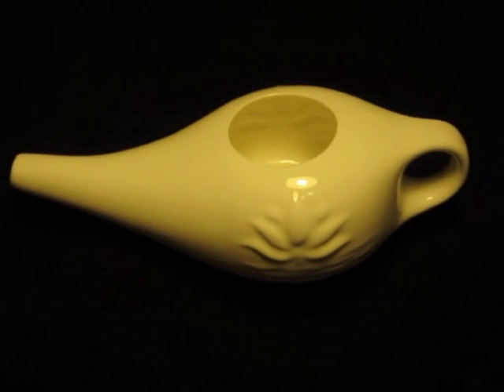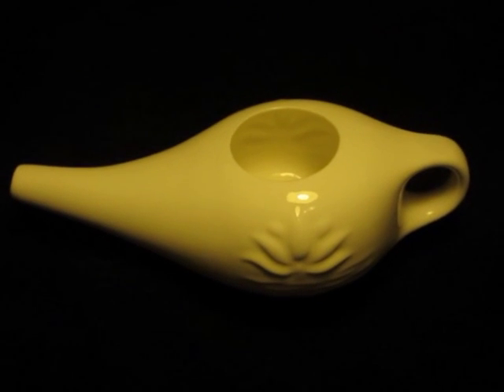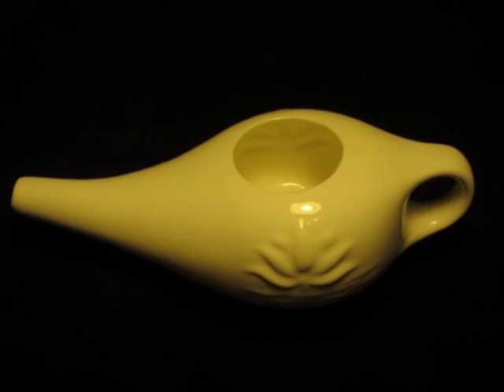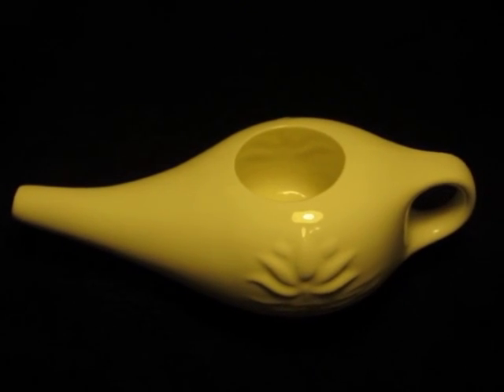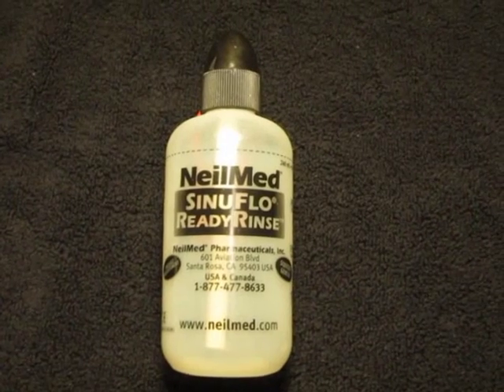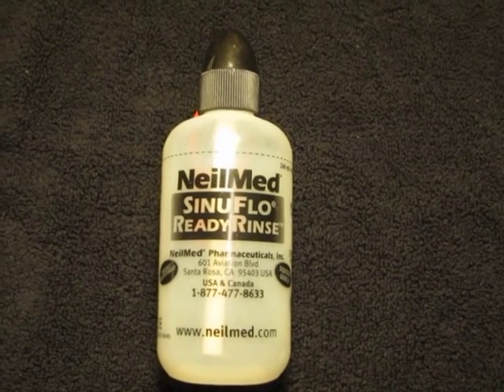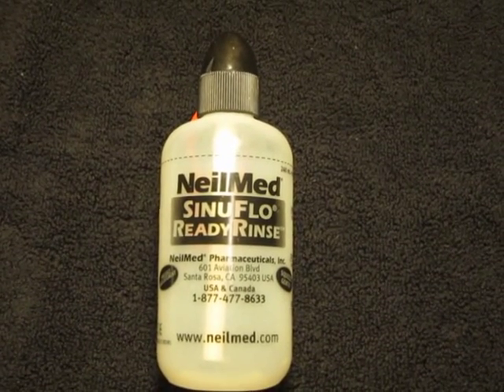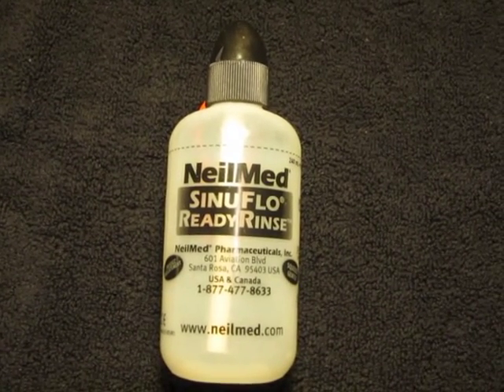The next device is the infamous neti pot. This is simply a long-necked pot where you mix the water and salt in the body of the pot, then insert the end of the long neck into one nostril and raise the pot to start the flow. The neti pot is great but it can be hard to clean, is usually rather fragile being made of ceramics, is not too easy to pack in luggage for traveling, and it does not have any means to provide pulsating action. Getting slightly fancier is the plastic squeeze bottle equipped with a suitable nozzle for insertion into the nostril. These are excellent for packing into luggage since they are unbreakable and lightweight. You can also modulate the water flow by rapidly altering the force you use to squeeze the bottle, achieving a sort of pulsating action by this method.